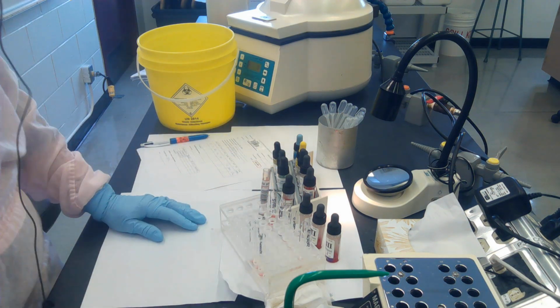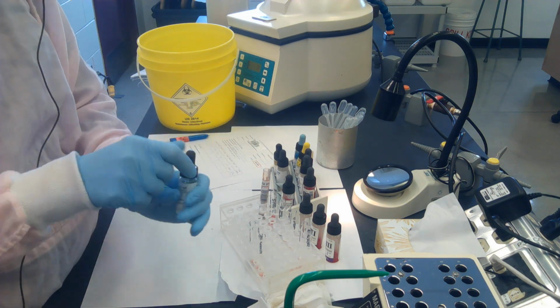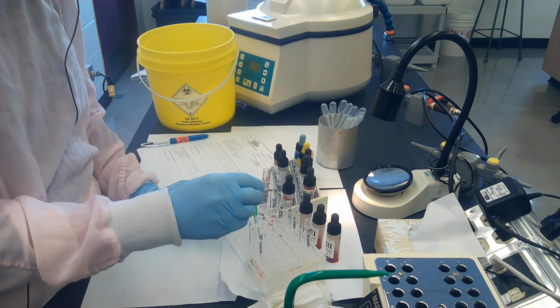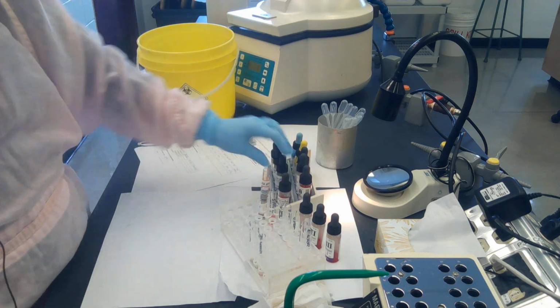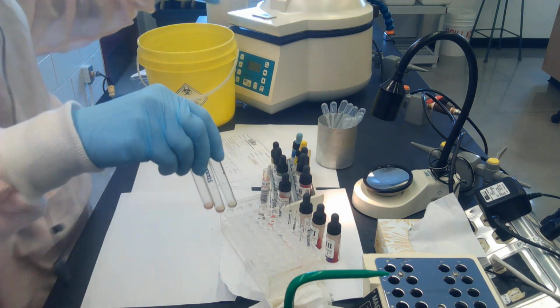The next step in your procedure says to add the anti-human globulin. So we use anti-IgG monospecific here at SAIT. And the SOP calls for 2 drops of anti-human globulin into each screening cell tube. The anti-human globulin will bridge the gap between sensitized cells if they exist in these tubes.